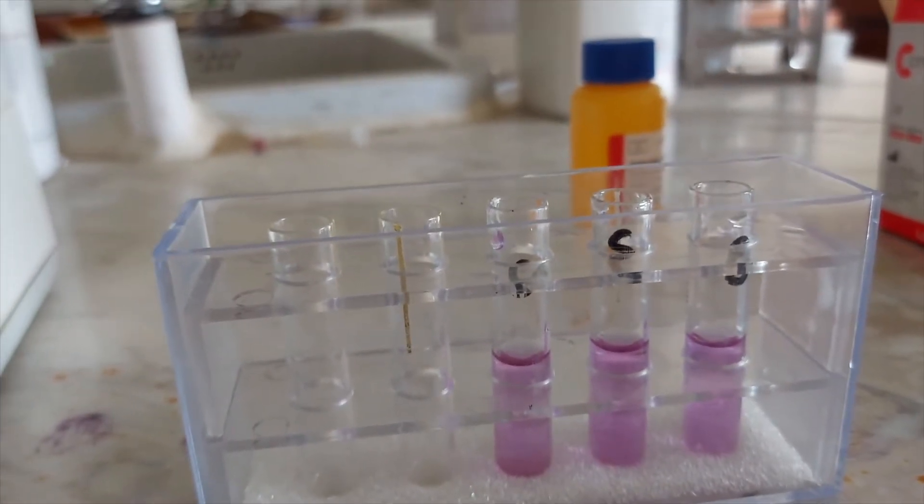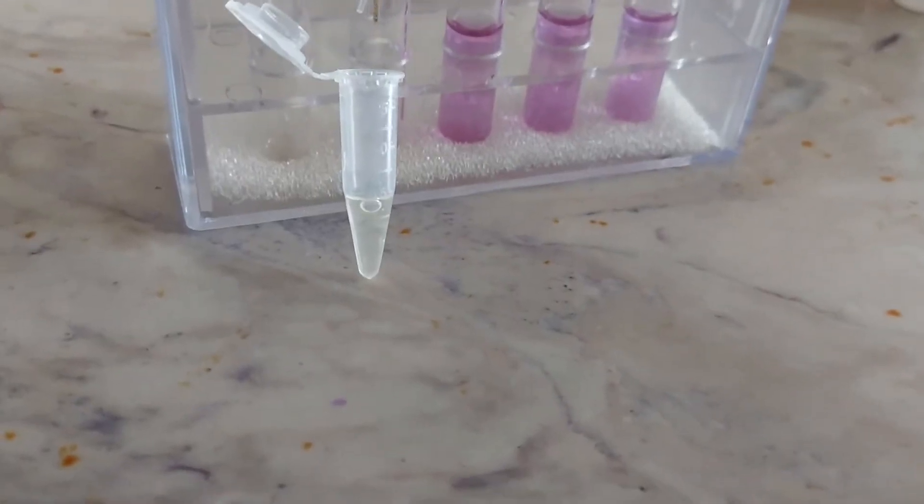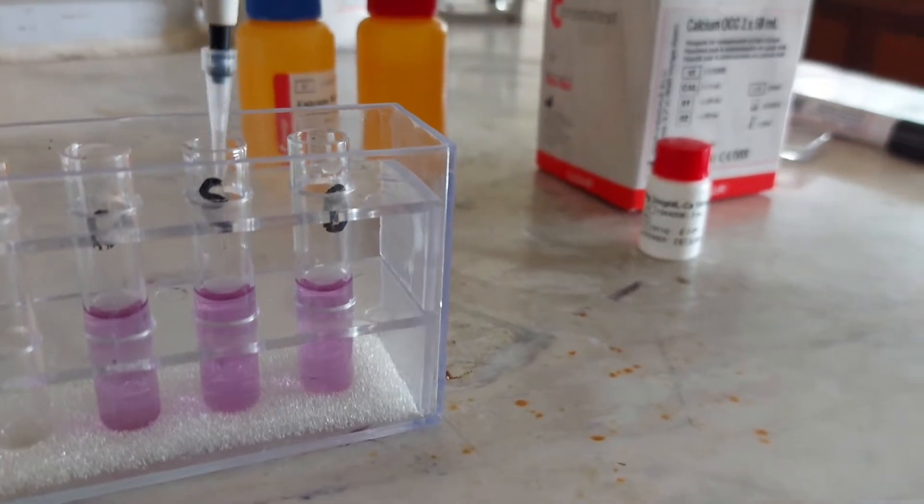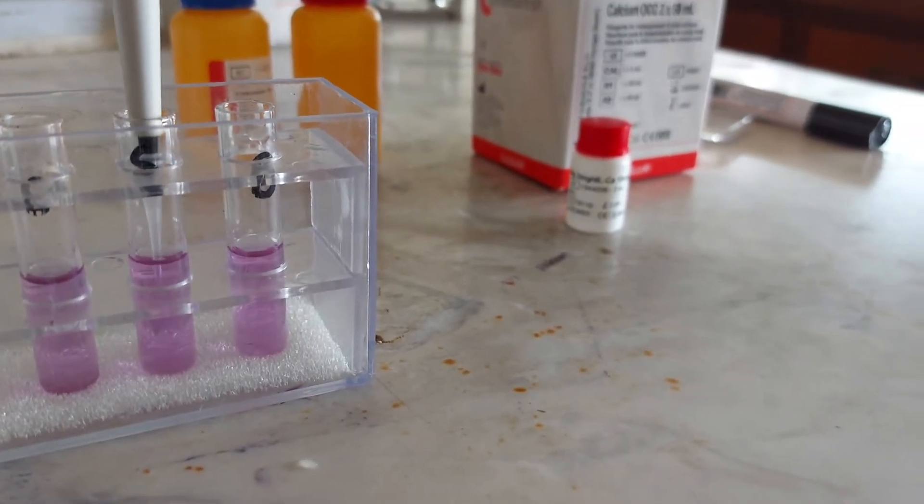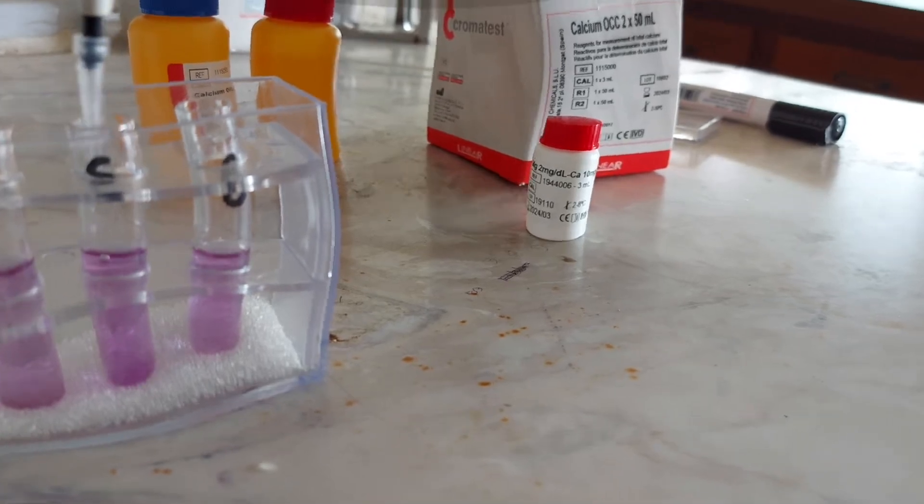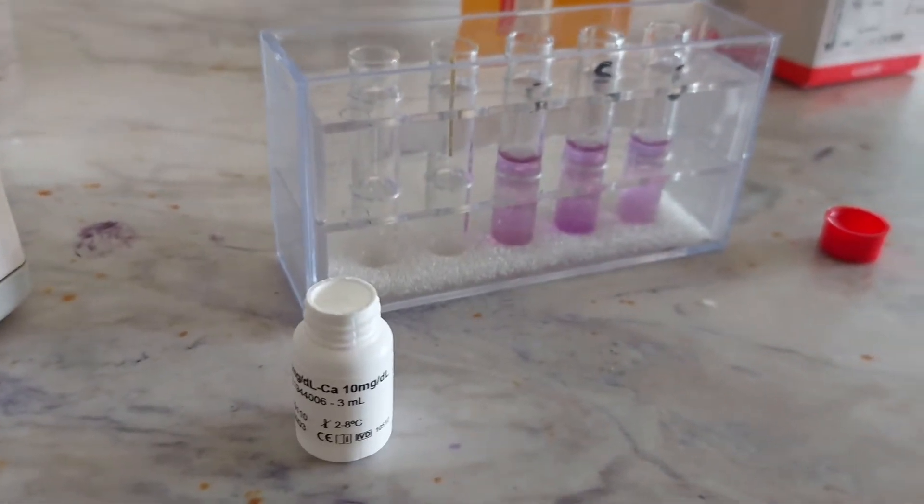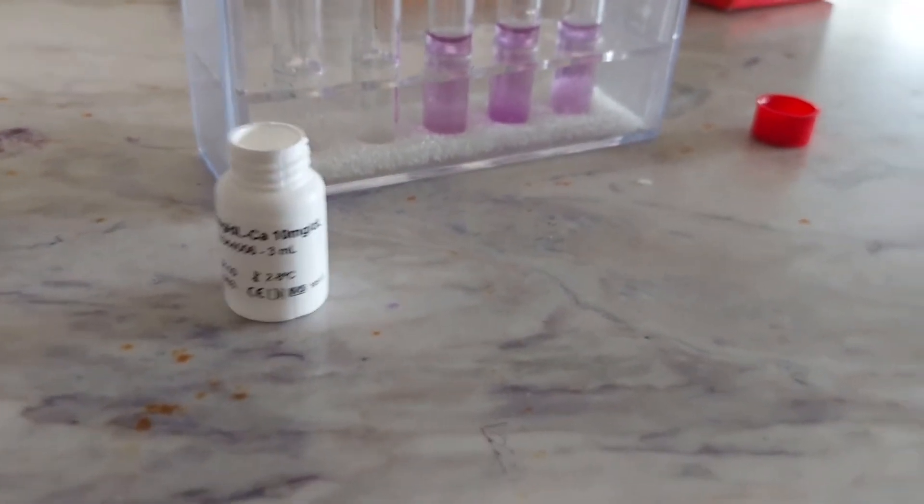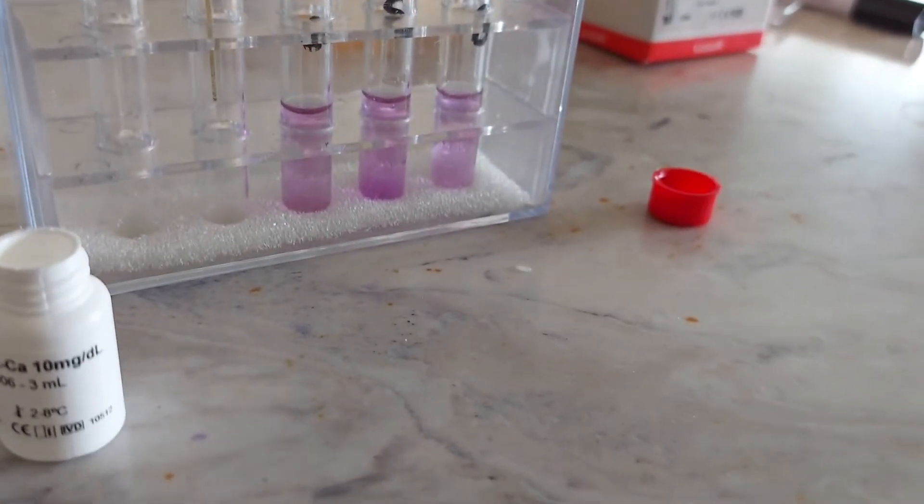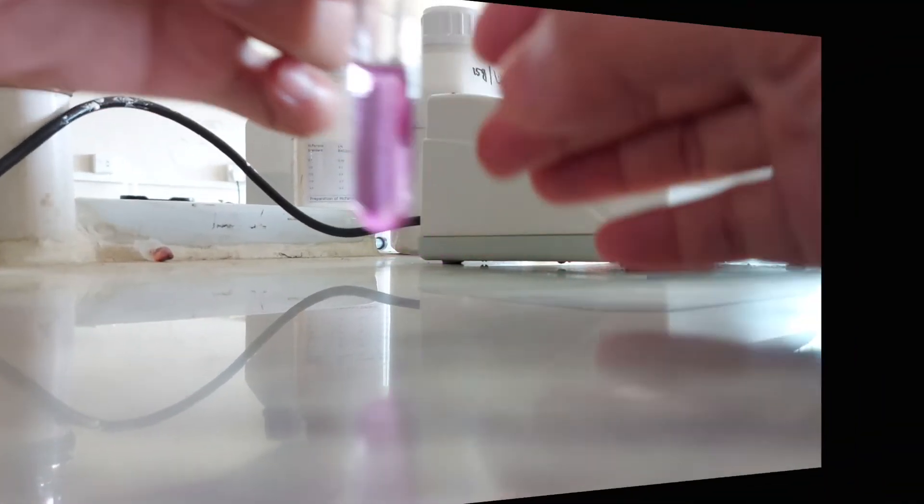We are ready to take the sample now. Now it's time to take the calcium standard. We have to mix the chemicals now.